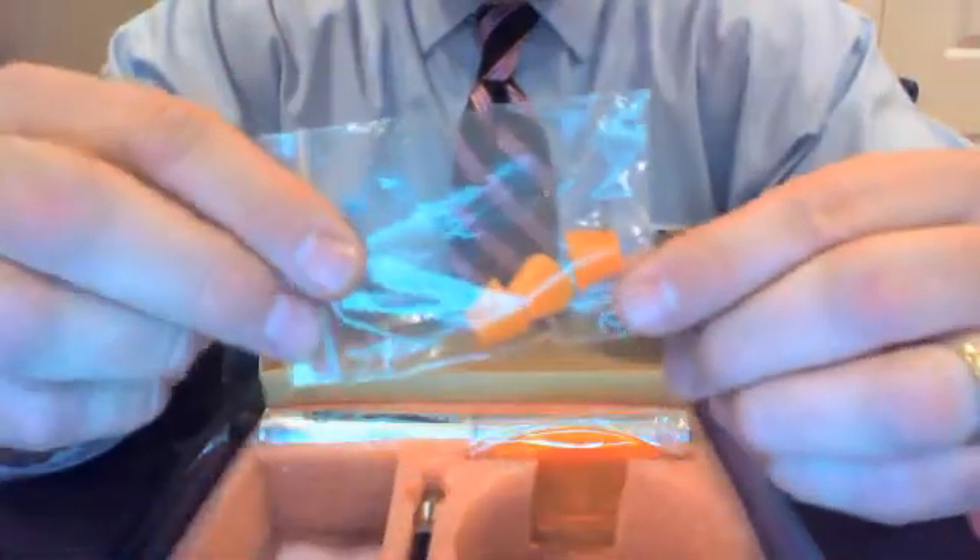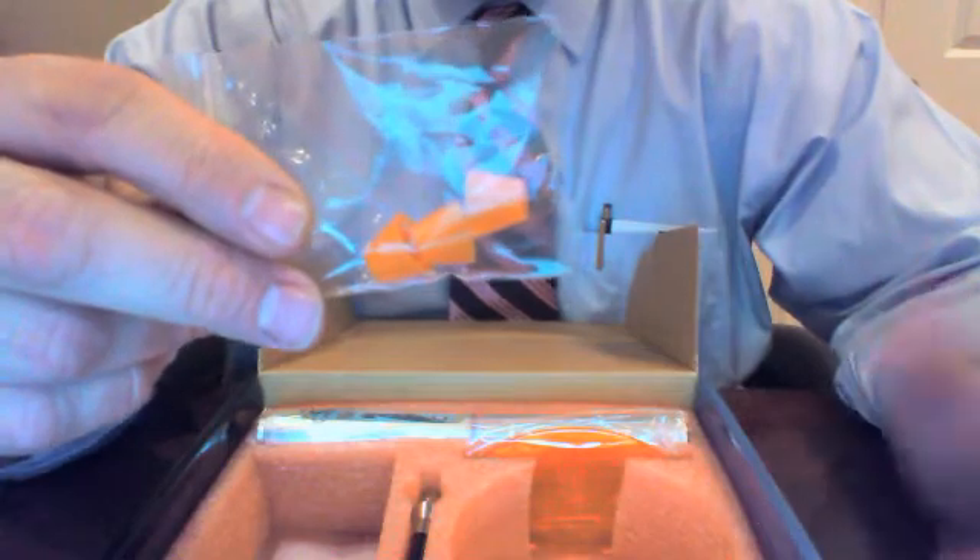We've included three of our tacking tips, which are available for reorder. These tacking tips come in very handy. When you're working with materials, it protects the tip from touching composite materials that would ultimately cure onto the end of the fiber tip, or whitening products that could erode the end of the fiber tip. So, tacking tips.